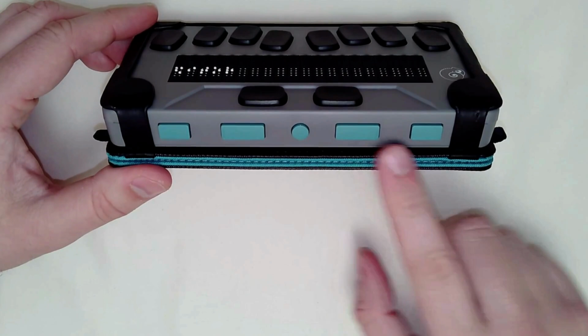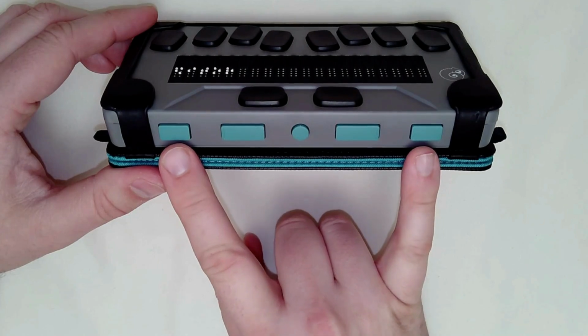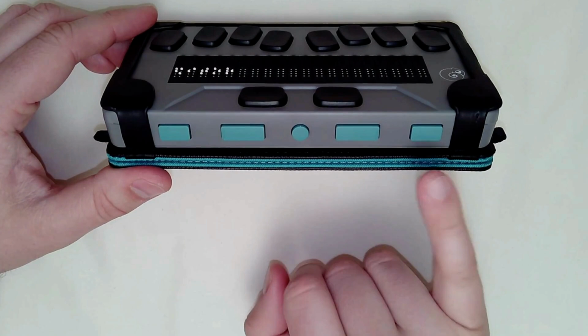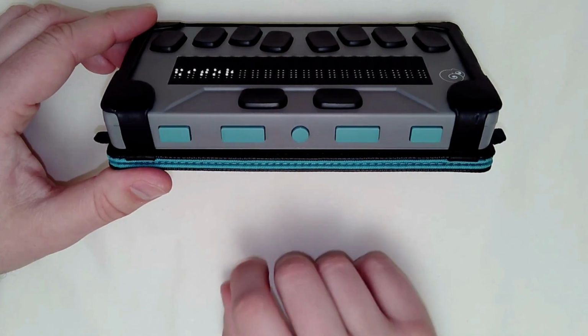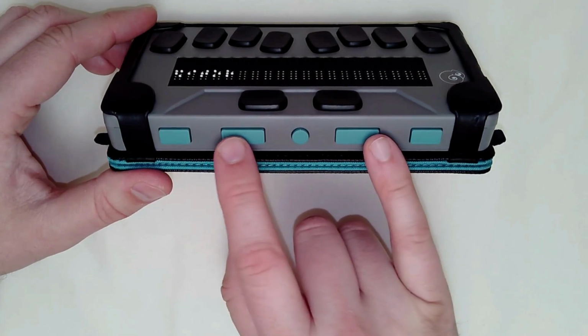The next way we're going to talk about is using the thumb keys on the front. Now there are 5 buttons total on the front. We're focusing at the moment on the far right and far left one, which are the previous and next thumb key. Previous being on the left, next thumb key being on the right. Just in from those, we have a little circular home button in the center, which we'll cover in just a second, and we also have your braille display panning keys in from those.